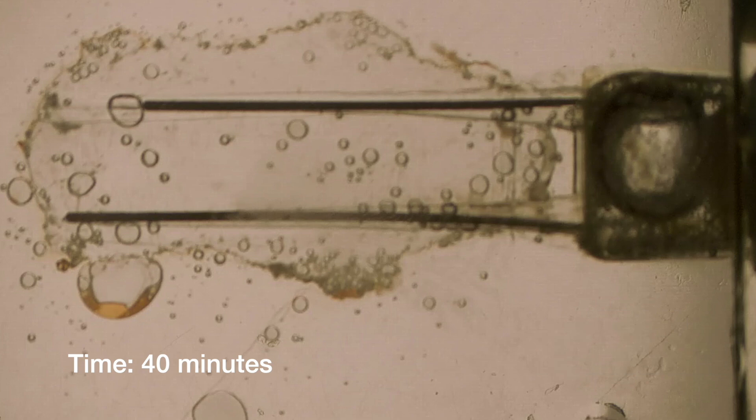So, you know, Marcus Haapasalo was right about how long it takes to kill and clean everything out of a complex root canal system. But nevertheless, this is remarkably clean.